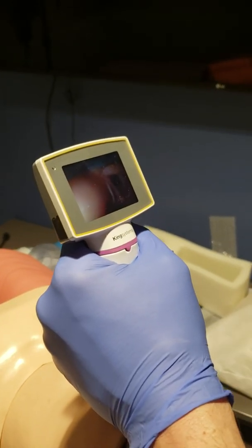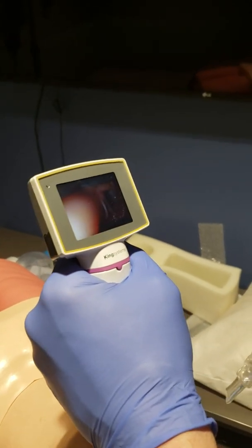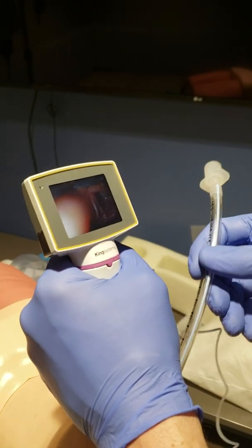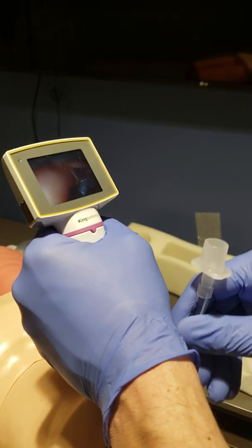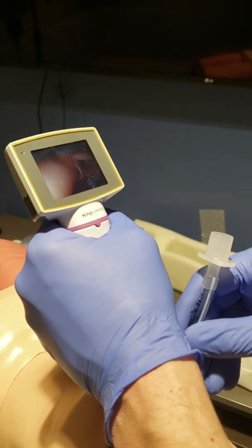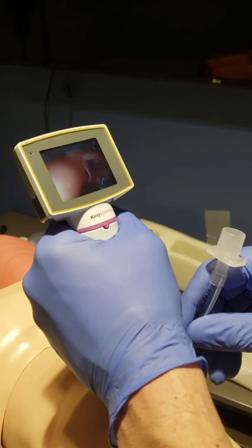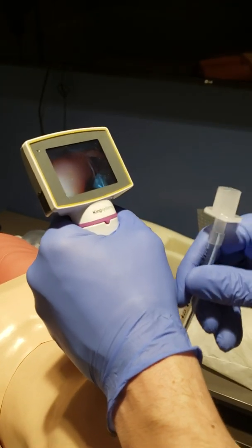What I want to show right here is that when I'm down in this position and putting my ET tube in, I might just not be able to get in. I could be going down like this and having a problem. If I don't have a stylet or a bougie in, there's really not that much manipulation I can do, and I might have a hard time.